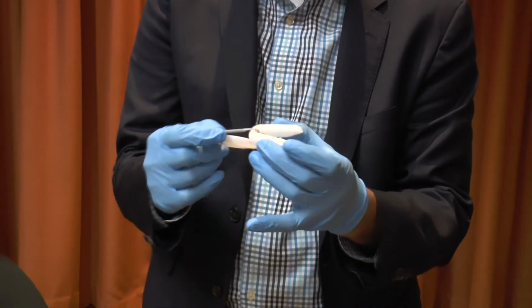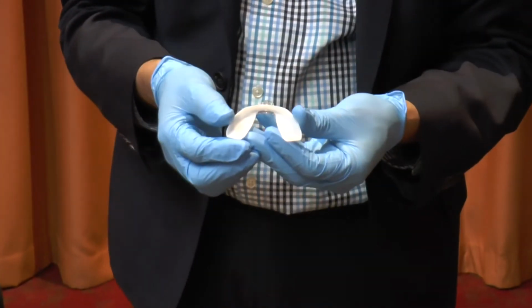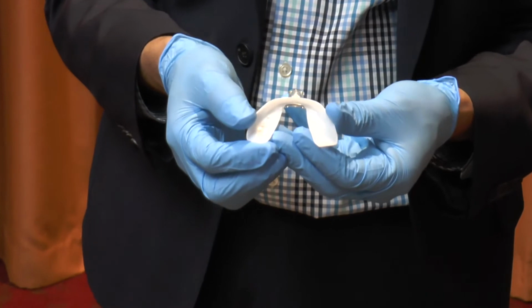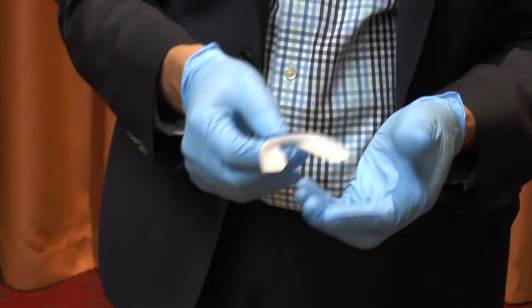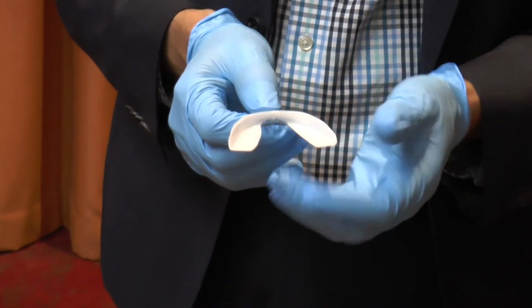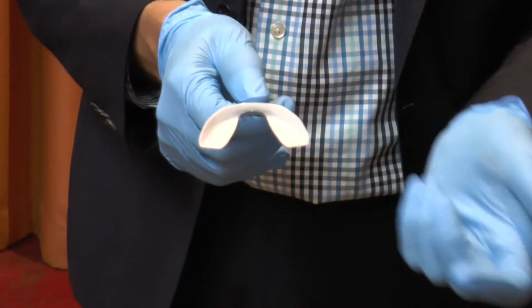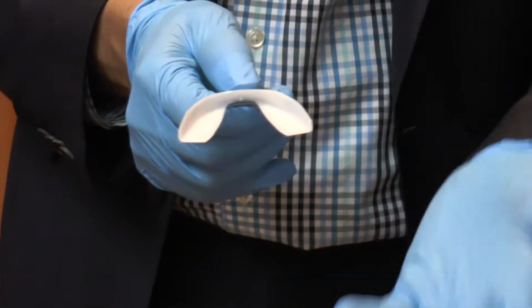As you can see, this shaft is very adjustable as well as movable. These custom devices are very adjustable where they can fit a different arch type, such as small, medium, or wide. The way you would set that is when you assess this in the patient's mouth, you want to make sure that the device itself will cover the teeth. If you find that it's too constricted, you can put in some warm water and expand it. Or on the other hand, if you think it's too wide, you can put it back in warm water and contract it so it fits the arch.